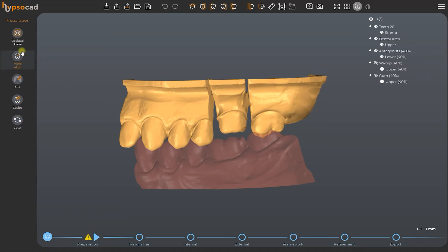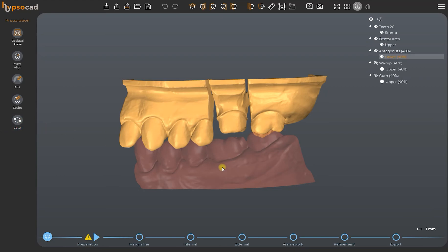On the left we will find a series of tools which are to be used in sequence from top to bottom. Please note it is not required to use every tool to carry out a good restoration. Now we can move on to crown modeling.